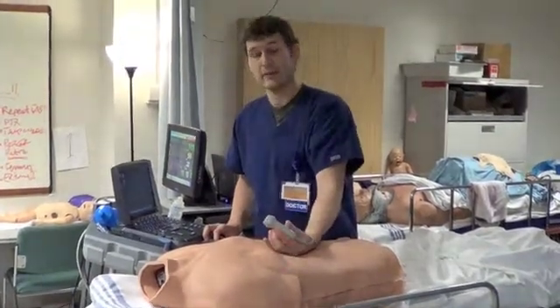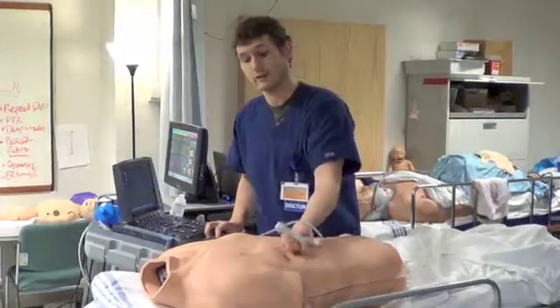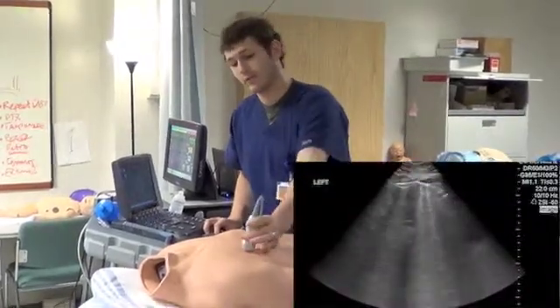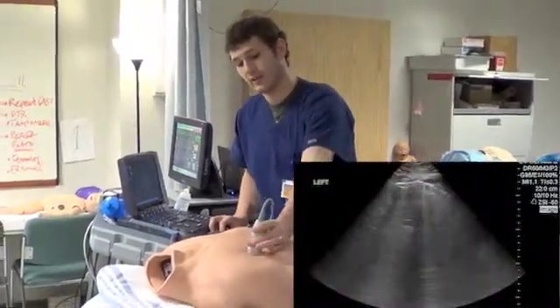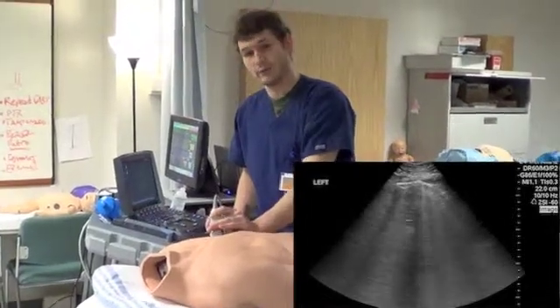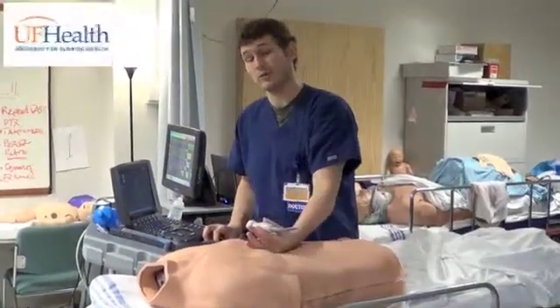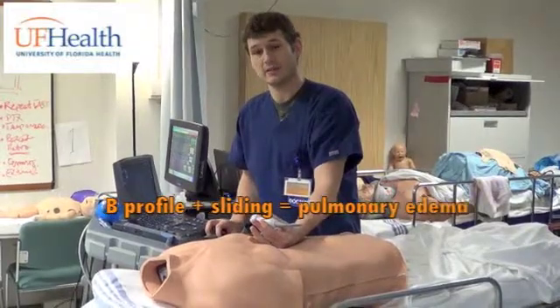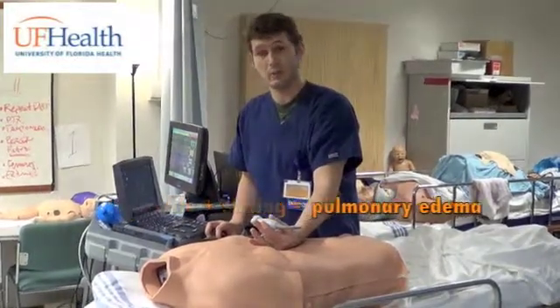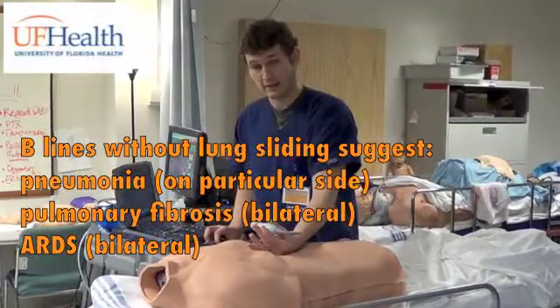The other profile we're evaluating for is the B profile. B profile is assessed by looking at the same BLUE points as before. If you have bilateral B profile present, your diagnosis is bilateral pulmonary edema and you can stop the exam.